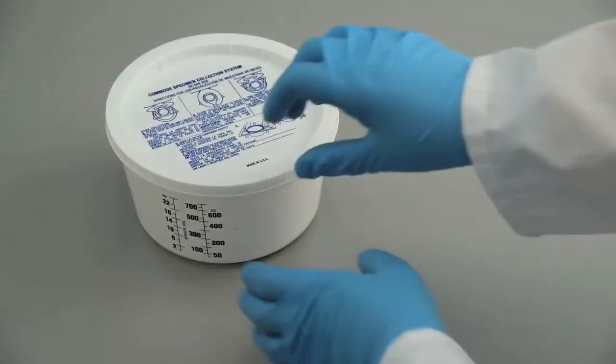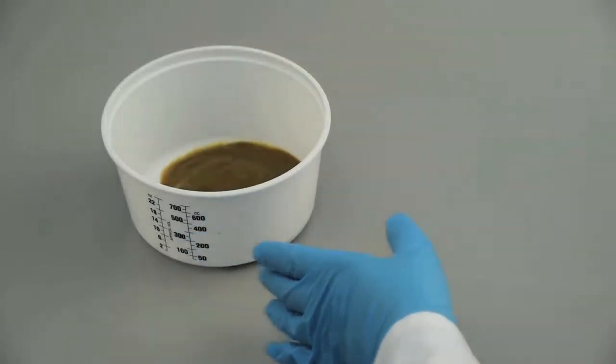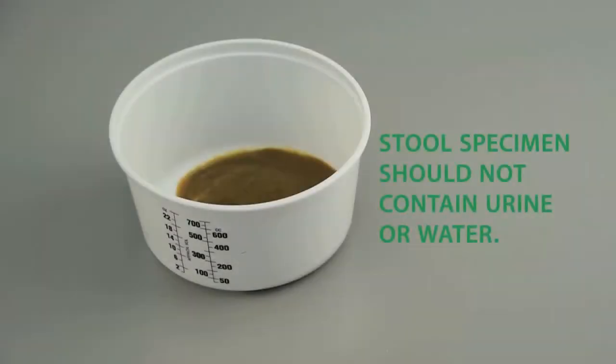Have the patient obtain stool specimen into a clean, dry pan or special container. Stool specimen should not contain urine or water.